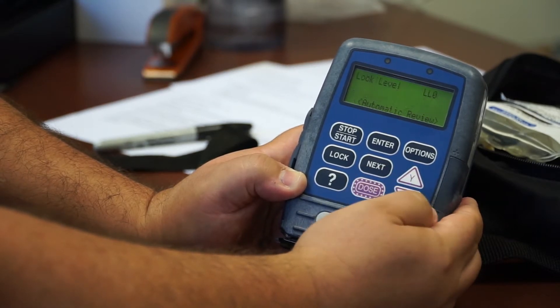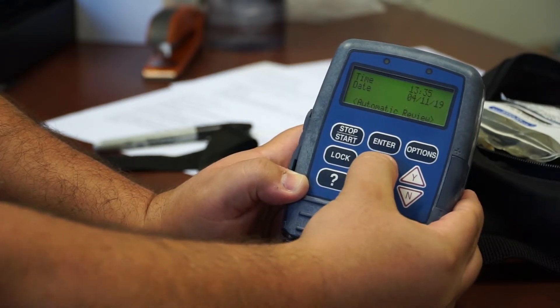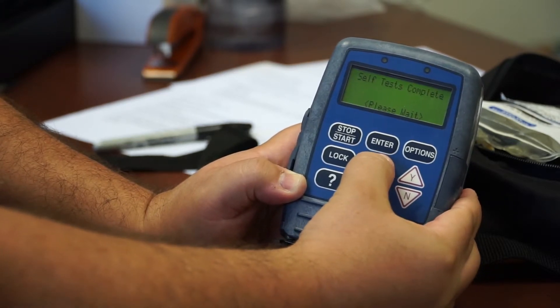So, now that it's still in lock level zero, we can go through and change each data setting according to your medication order.